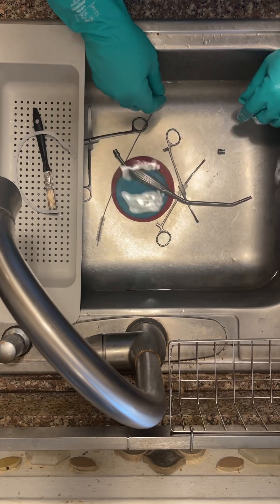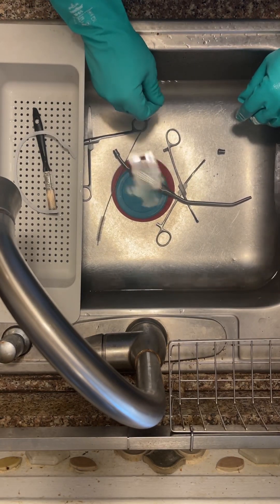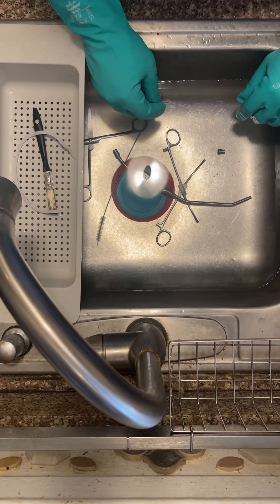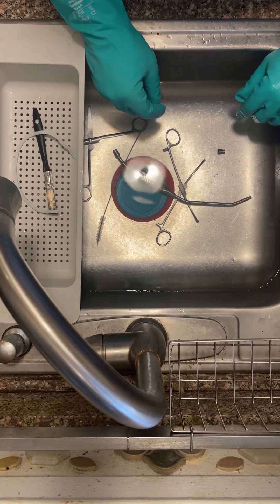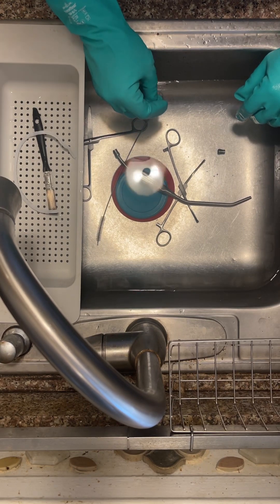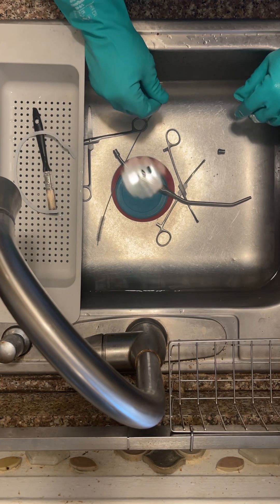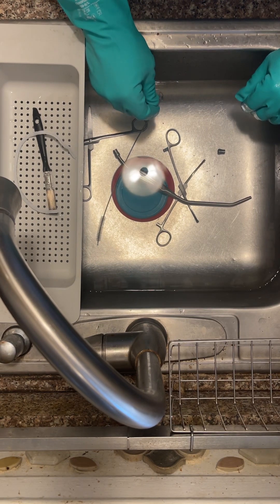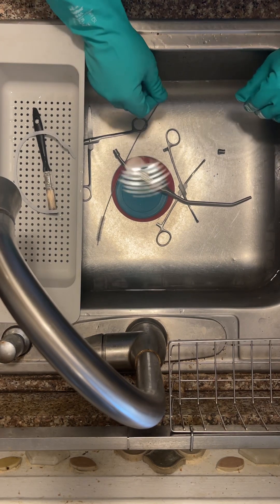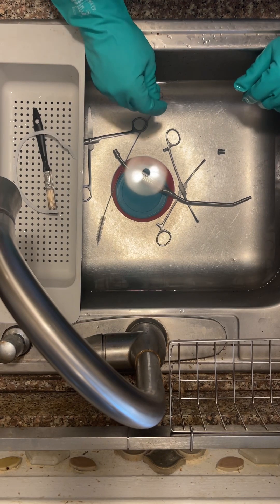Once you're done with your initial wash, you would go to the intermediate sink, which would have softened water to help remove the detergent and any other loose debris. In the final rinse, there will be distilled or deionized water to remove all trace elements — that will be the cleanest of the rinses before going into the washers.